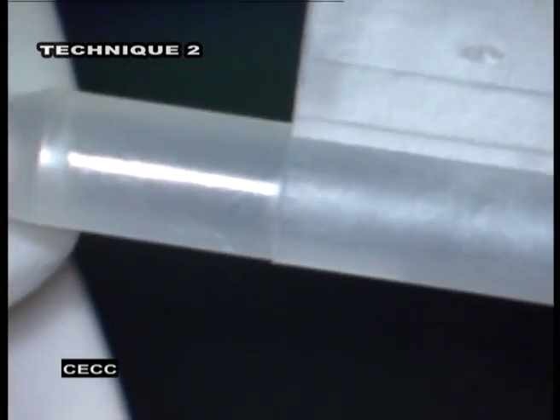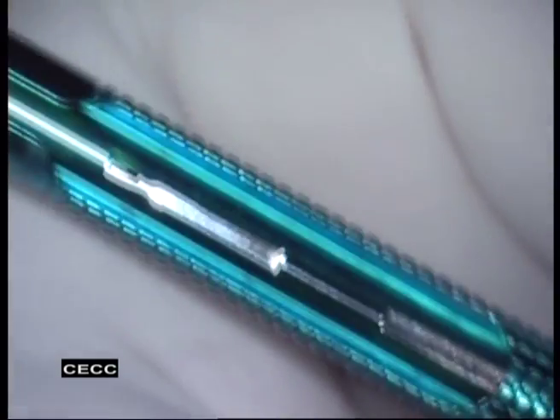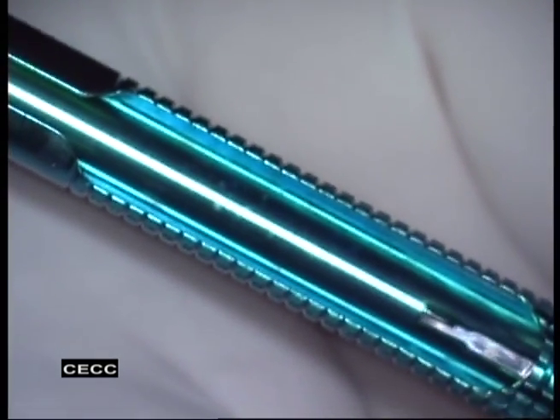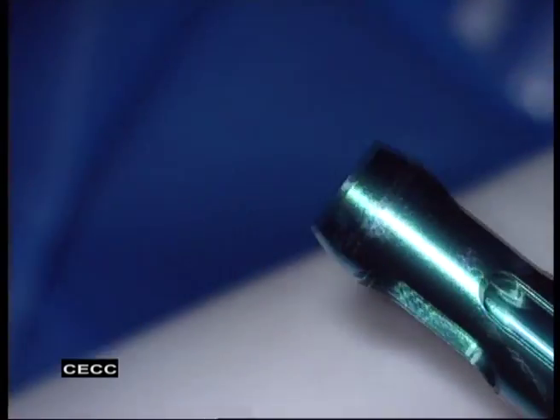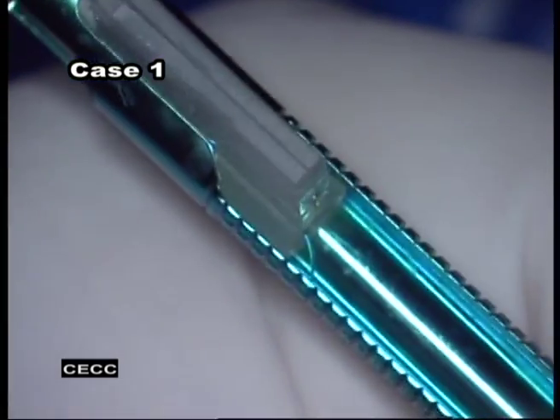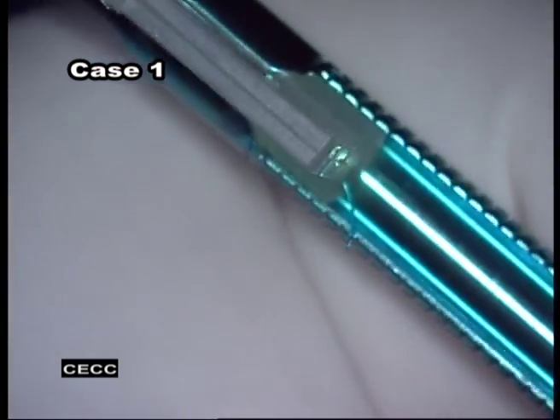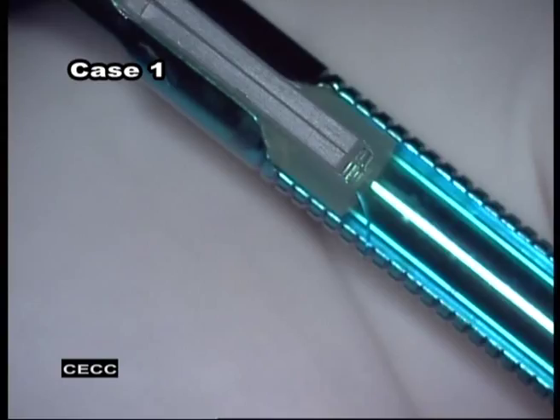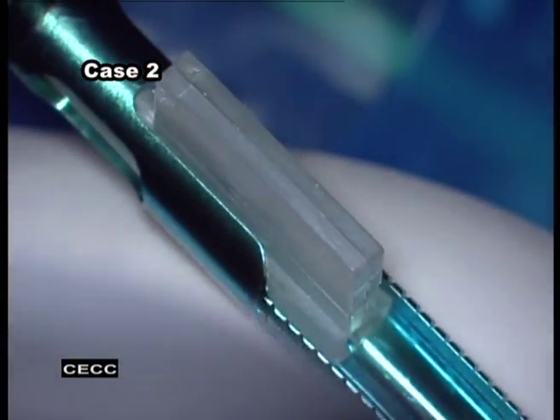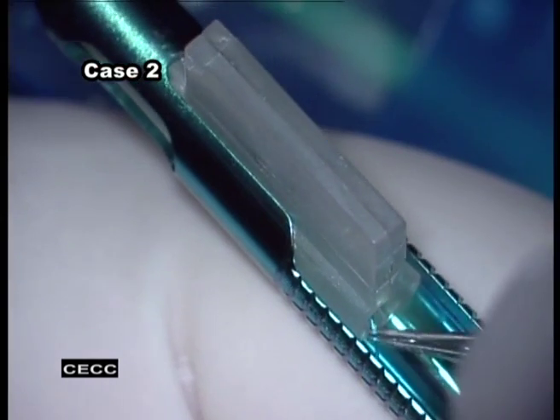After closing the wings, hold them together prior to inserting the cartridge into the Unfolder Emerald series handpiece. Ensure that the rod is retracted completely. Gently push the cartridge forward into the slot of the handpiece until the cartridge stops. Check to ensure the trailing haptic is to the left of the rod and is not caught by the rod. The tip of the trailing haptic should be placed pointed outside of the handpiece. This may occur simultaneously while loading the lens in the cartridge, as you see in this case.